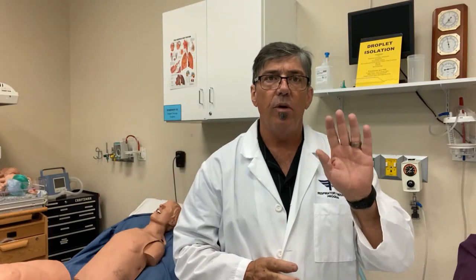Hello everyone, Chris here. Hope everyone's doing well. Today we're going to take a look at the most basic type of continuous medication aerosol system — something you might utilize in the emergency room, something that is simple, quick, and easy to set up to deliver a continuous bronchodilator therapy.